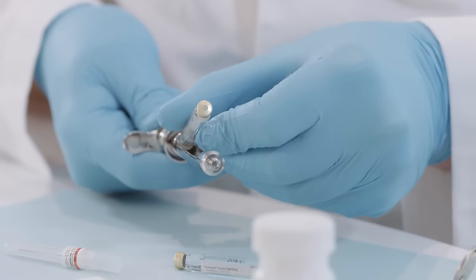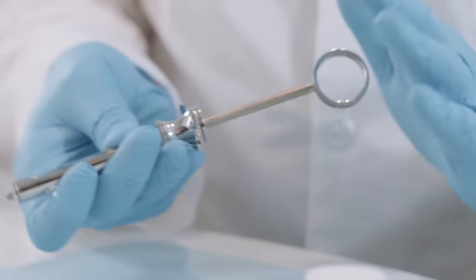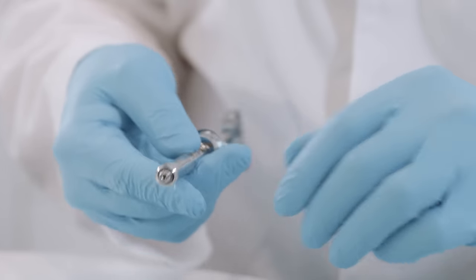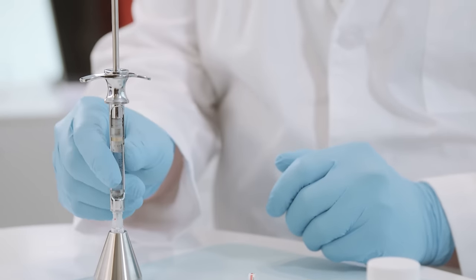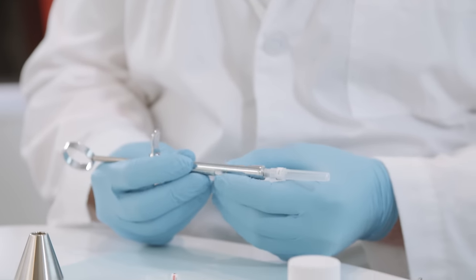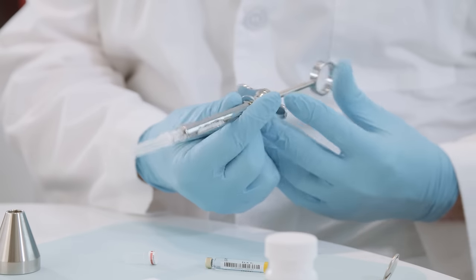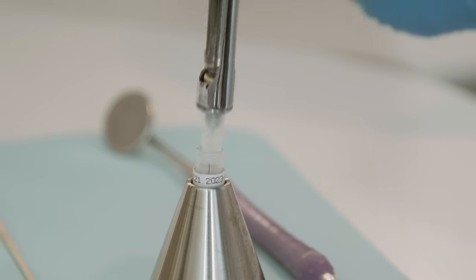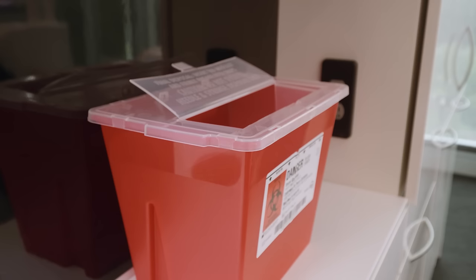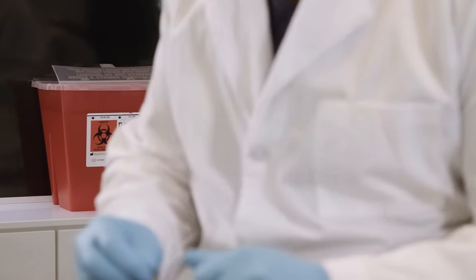When used correctly, the single-dose cartridge, sterile needle, safety capper, and aspirating syringe combine to ensure accurate placement of the local anesthetic solution with minimal risk to the patient. Proper care and handling of contaminated needles and cartridges will reduce the risk of sharps exposure to the patient and clinician. Needles should be immediately covered by a protective shield to prevent accidental needle stick. Recapping devices come in cardboard, metal, and plastic materials. Approved sharps containers are mandated to dispose of contaminated needles, used cartridges, and other sharps, and should be properly disposed of according to federal, state, and local regulations.